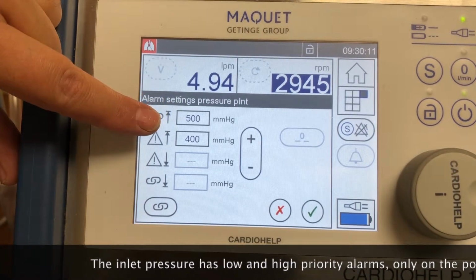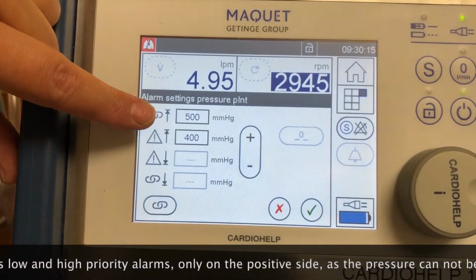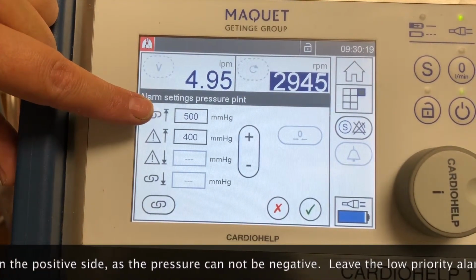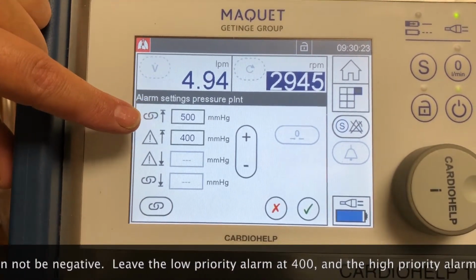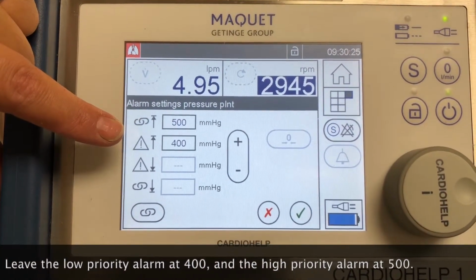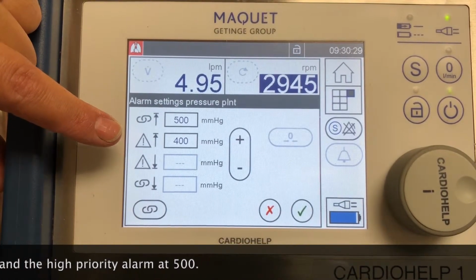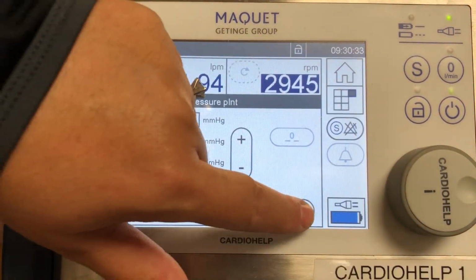These ones are usually set by the manufacturer at 400 and 500. I would just leave it right there and I would not change it. These positive pressures are not going to affect your flows directly as much, unless there is really a big kink in your arterial pressure line that really cannot flow forward. Otherwise, these do not directly affect your flow. The venous does directly affect your flow.